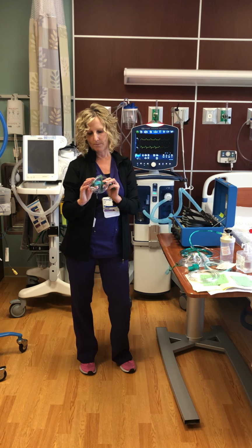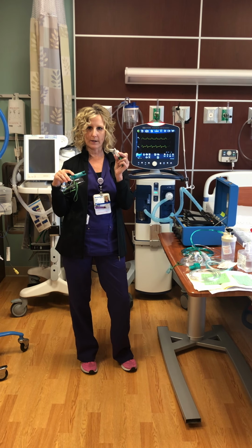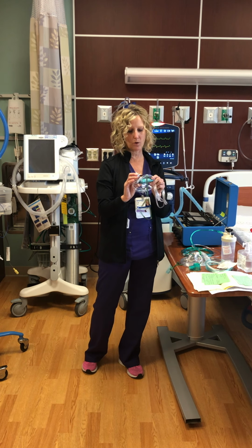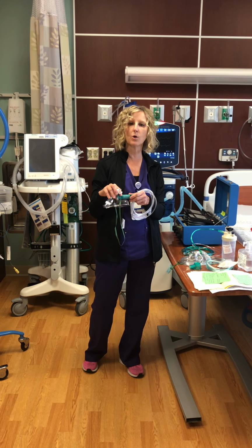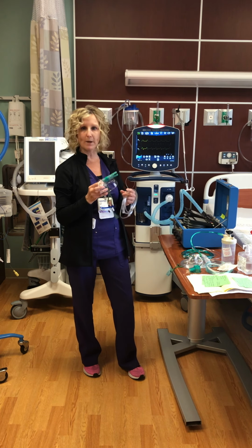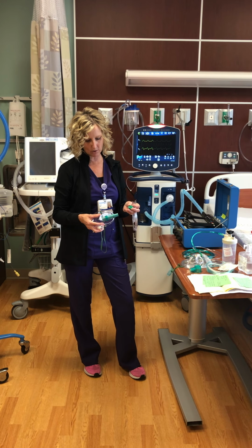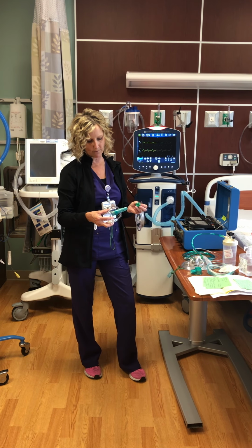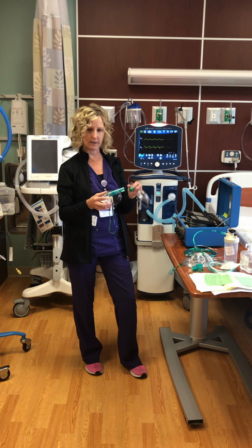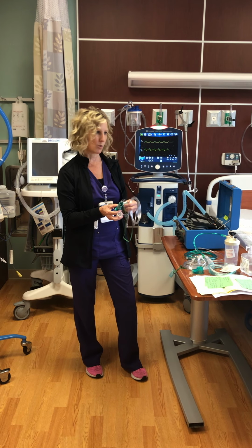The setup is based on the numbers. The higher numbers, 35 to 50, are white, and we use the white adapter. Then the oxygen tubing is hooked up, and it gives you a coordinating flow rate in liters per minute for what you're going to set your actual flow meter at. The smaller concentrations are in green, and those are 24 to 30%. Then you'd use the green adapter, and it gives the correlating liter per minute flow rate for that.